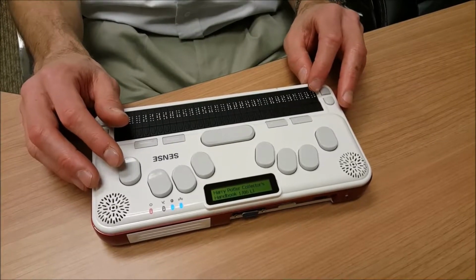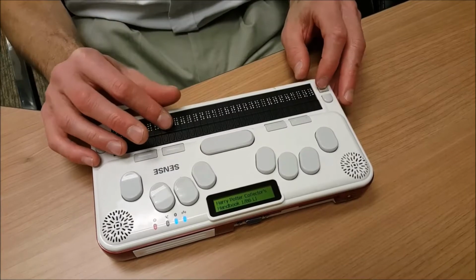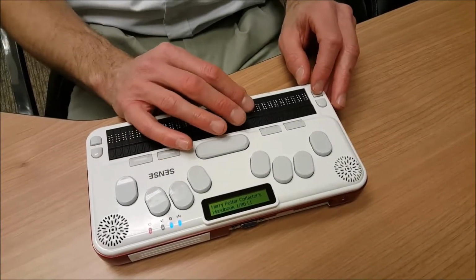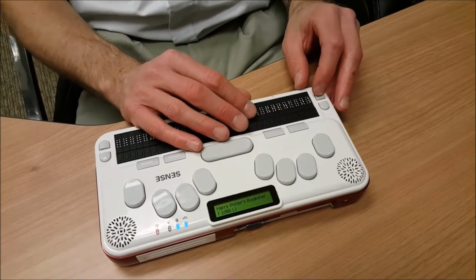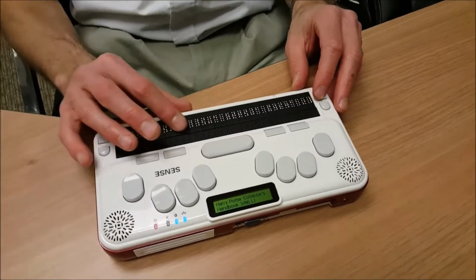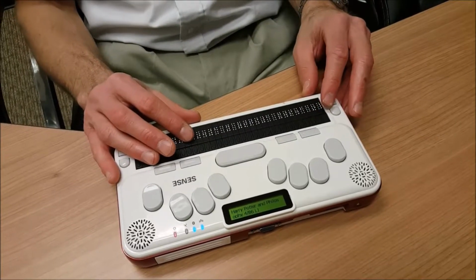Harry Potter Collector's Handbook, 1 of 86. Wow, so there are 86 different Harry Potter books. We could go through them all, but time won't permit. I can use my scroll buttons to move from one book to the next. Harry Potter's Bookshelf, 2 of 86. Harry Potter Collector's Handbook, 3 of 86. Harry Potter and Philosophy, 4 of 86.